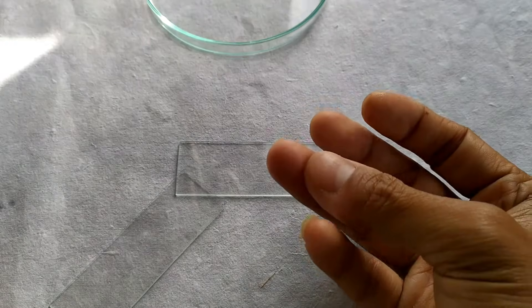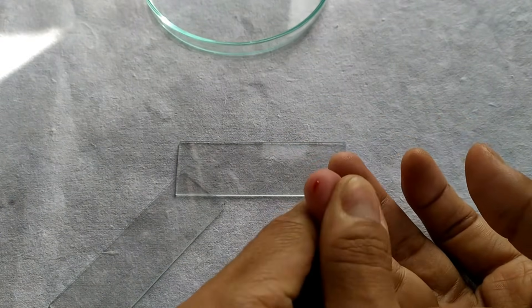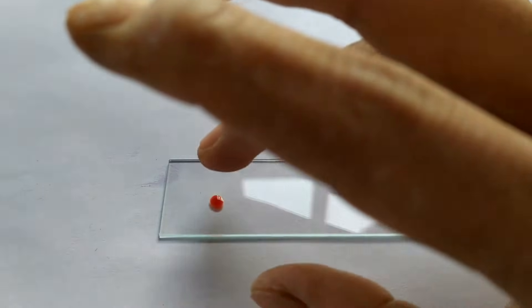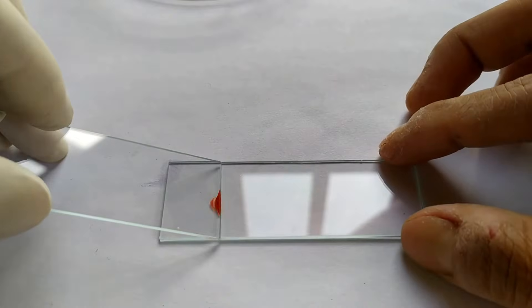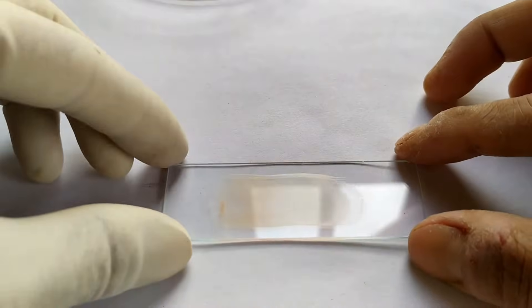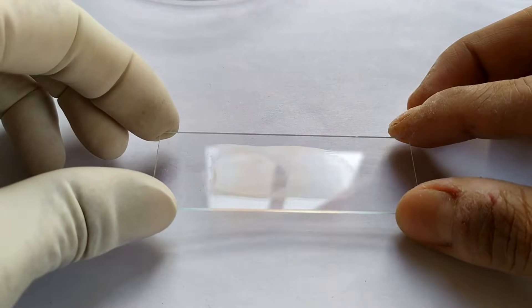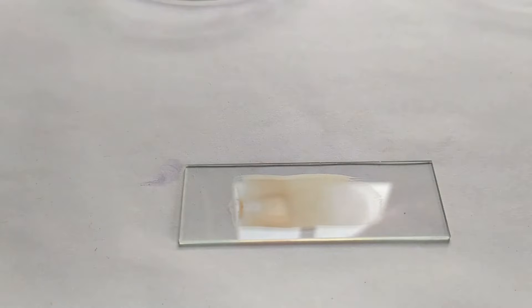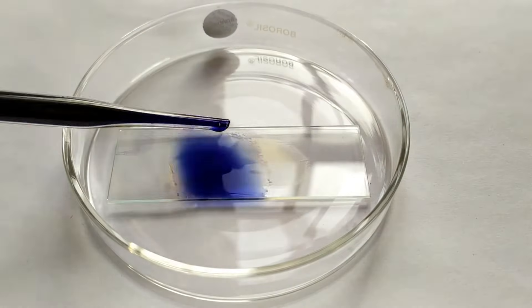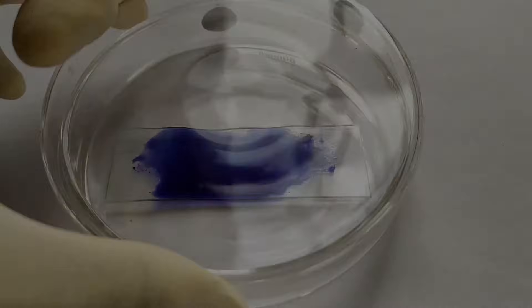To begin the DLC procedure, first prepare a thin peripheral blood smear of the given blood sample and stain it with an appropriate dye solution. Do watch my detailed video on how to prepare a stained blood smear and get a clear idea of how each type of WBC appears under the microscope by clicking on the link given at the top right corner of the screen or the link given in the video description below or the hashtags given right above this video title.